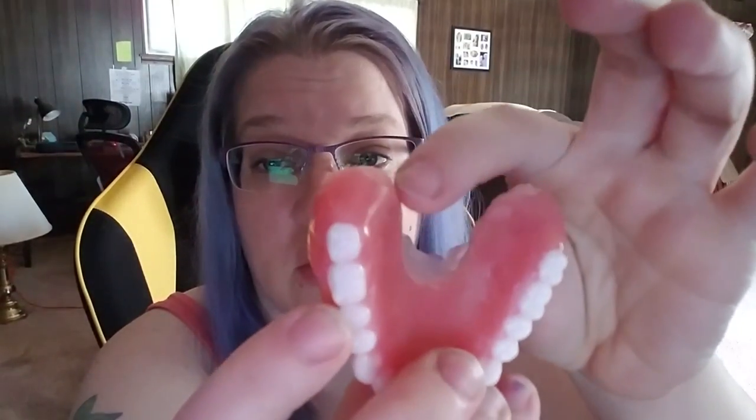I've got just a little bit of denture fit on here to give me that cushion. This all still fits very well, and here's my suction spot right here. I've cut out everything where my torus was, so essentially I've horseshoed my denture myself. I showed this to Jamie and asked if it was okay — he asked how it felt, I said it feels amazing, he said then it's fine. He also said he could do that to my next set if I order from him again.